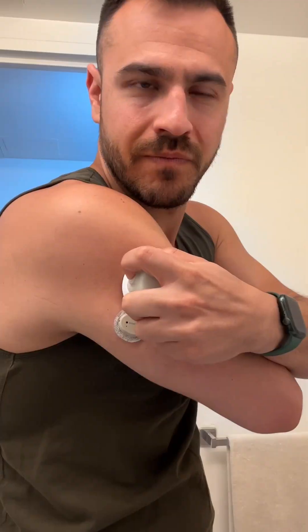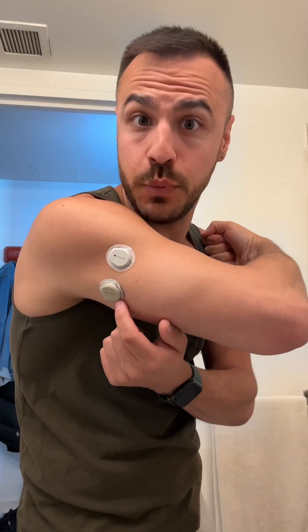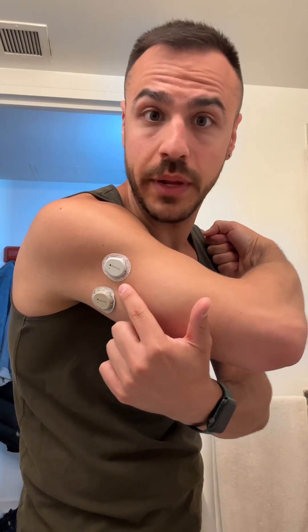I'm going to literally put it right on top. This one is warming up — in 30 minutes it will be ready. This one's going to keep giving me readings over those 30 minutes. I'll deactivate this one, start this one up. There's no gap. I'll be back in 30.